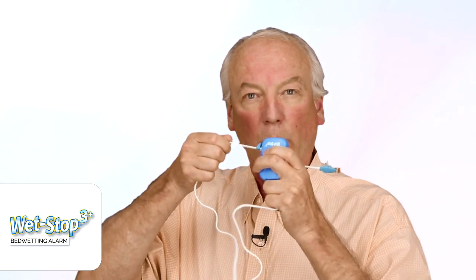Make sure your child is told not to tug and pull on the device, and keep the rubber protector of the plastic tab in place. Put the sensor in the area where wetness occurs — probably on the outside of the underwear is best, but you can put it on the inside and it can also be placed in a pull-up if you prefer. Make sure the internal switch is set to your preferred mode: alarm, vibrate, or alarm and vibrate.